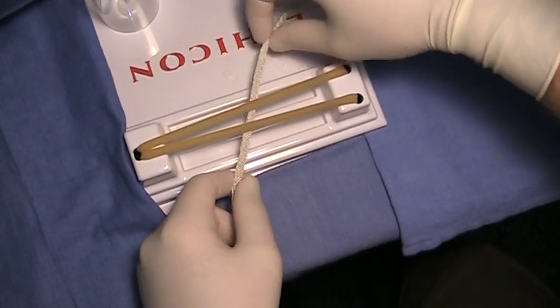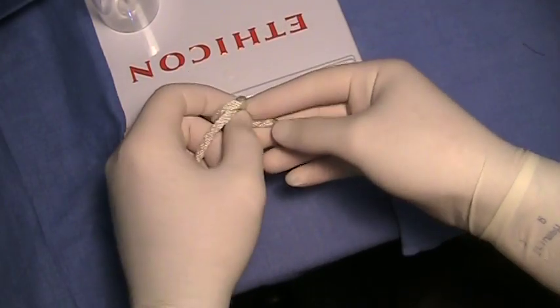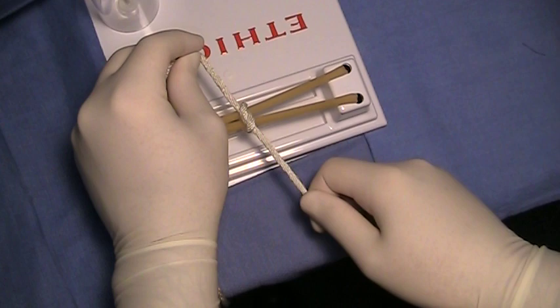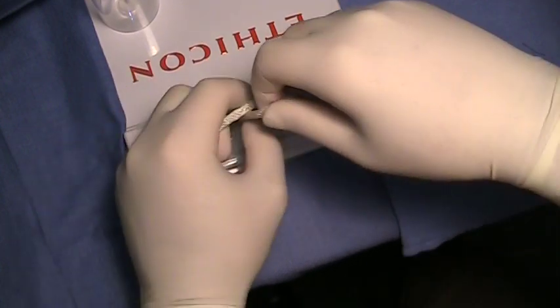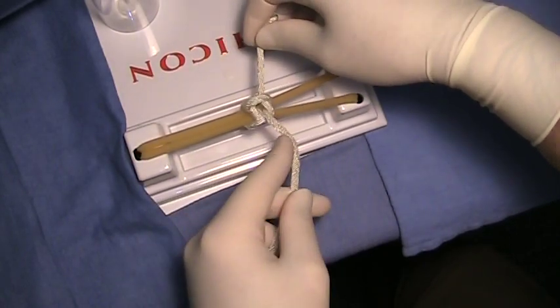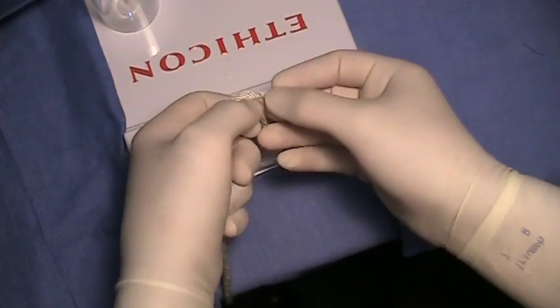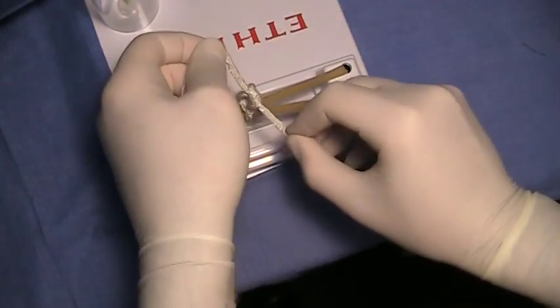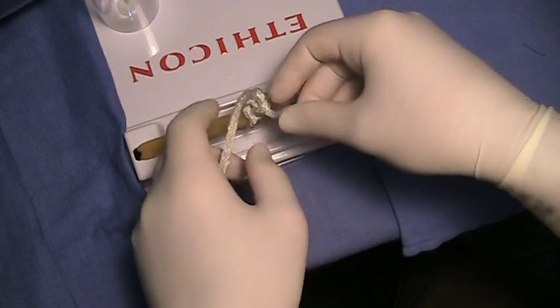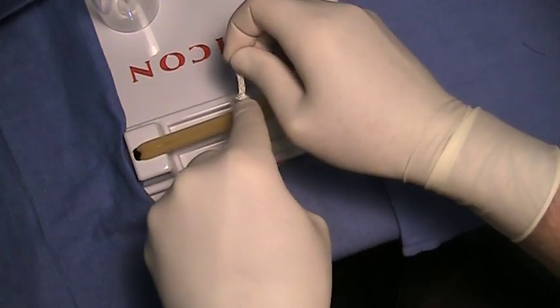To visualize some standard errors to avoid: first, the air knot is caused by a lack of securing or pushing down your knot. You can pull without using your index finger to secure the knot, and then your second throw will come through, and if you pull too gently or don't tighten it down, you'll get a gap between your knot. With that gap in place, if you then throw your next knot, you will lock in that air and that will be dangerous. Make sure that when you tie your knot, you use your index finger to cinch it down tight.